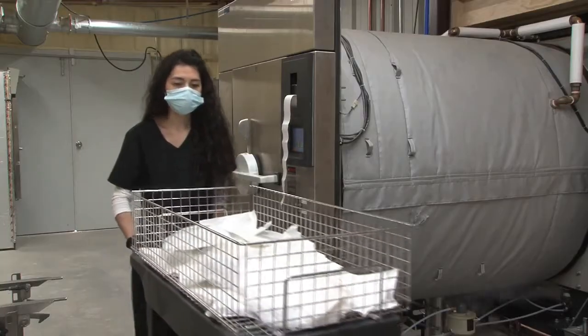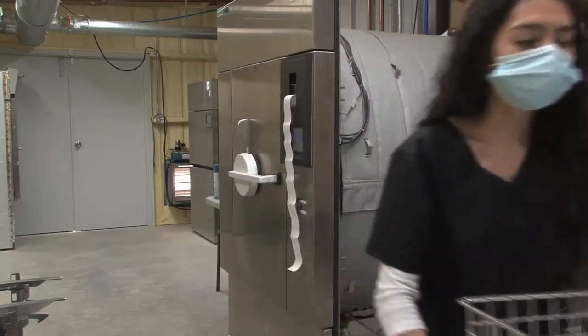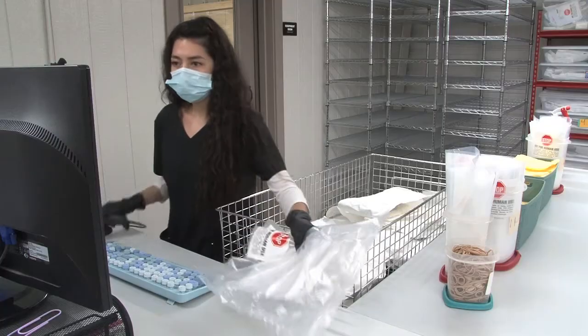Once decontamination has taken place, devices move to shipping for packaging. Devices are then routed for return delivery to the proper analysis site.